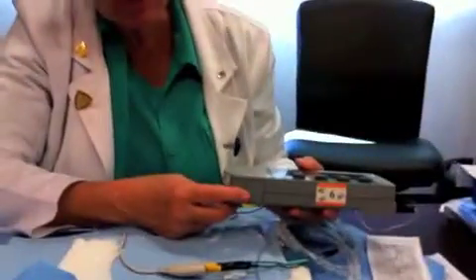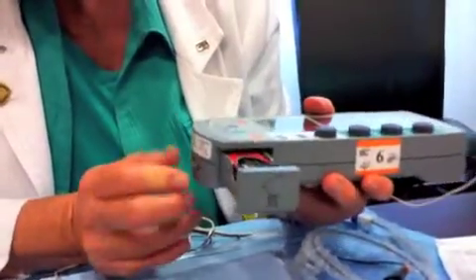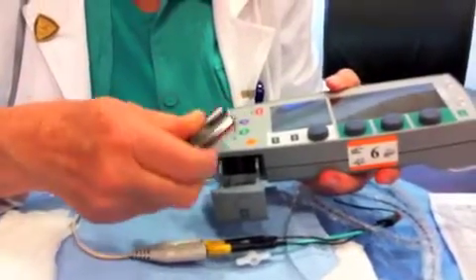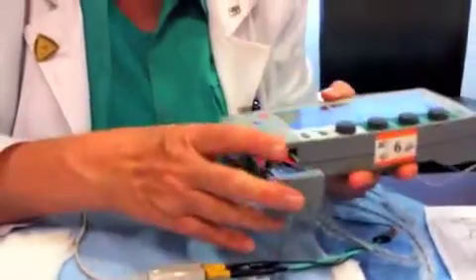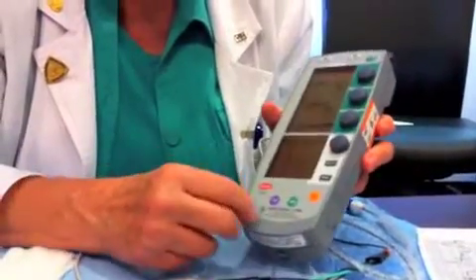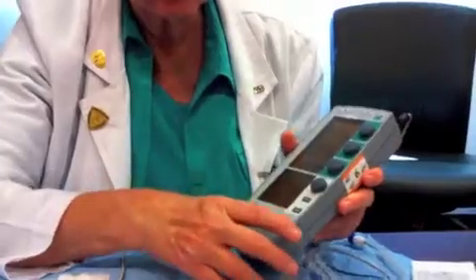The last thing I want to talk about is changing the battery. If you push this little button here, there is a nine-volt battery and you can put it in either way. It stays on while you're putting the battery in, so you'll have a chance to change it. It has an internal battery, but it doesn't last very long.